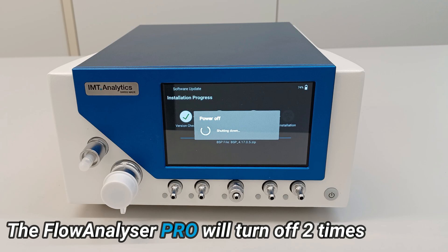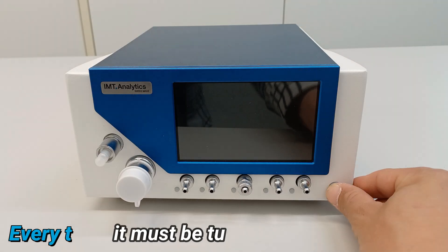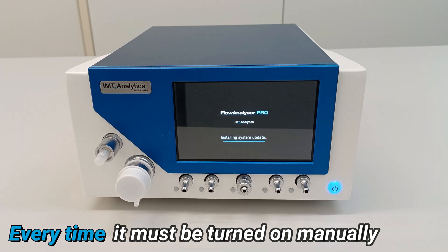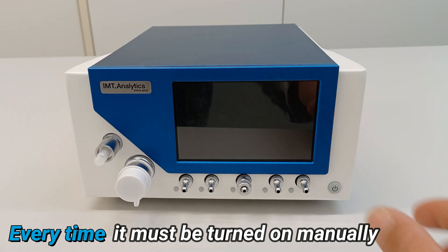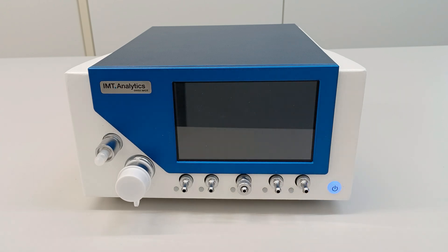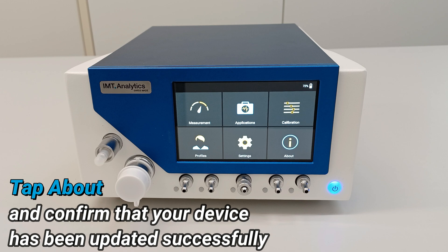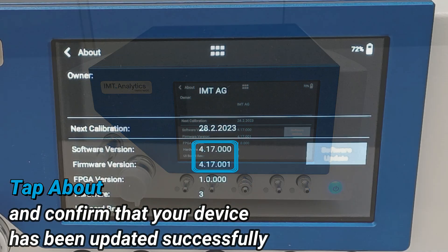The Flow Analyzer Pro will turn off two times. Every time it must be turned on manually. Tap About and confirm that your device has been updated successfully.